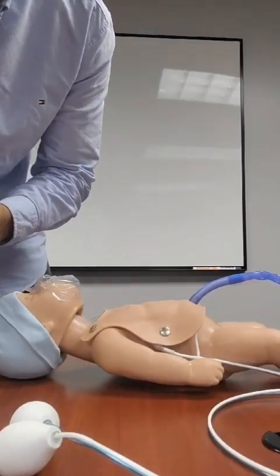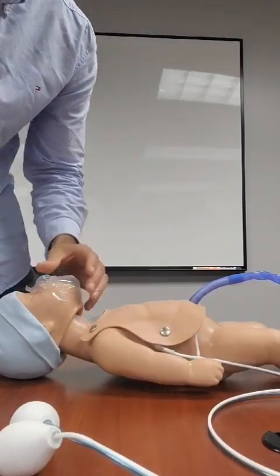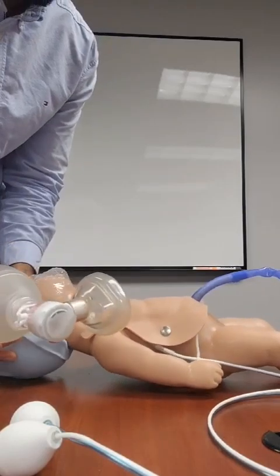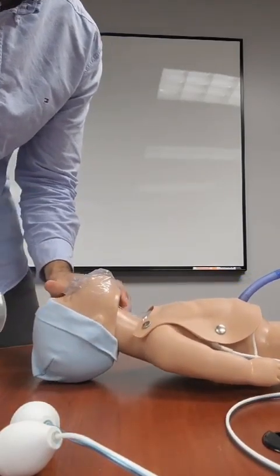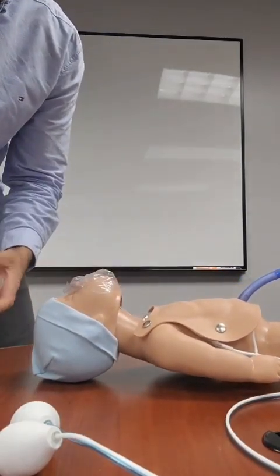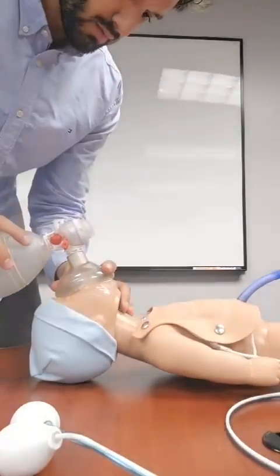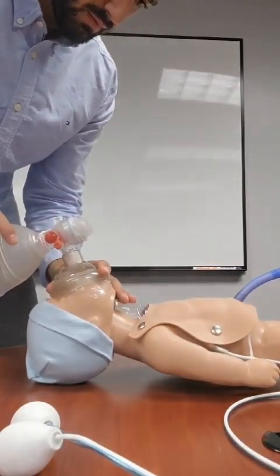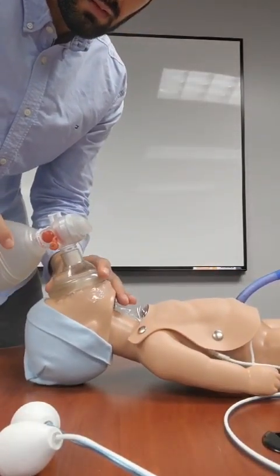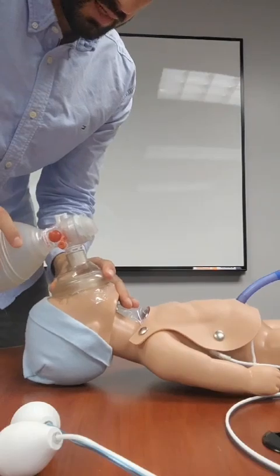And then I'll also demonstrate how the ventilation works. So the head will need to be tilted back. And again, you can see the chest rise and fall.